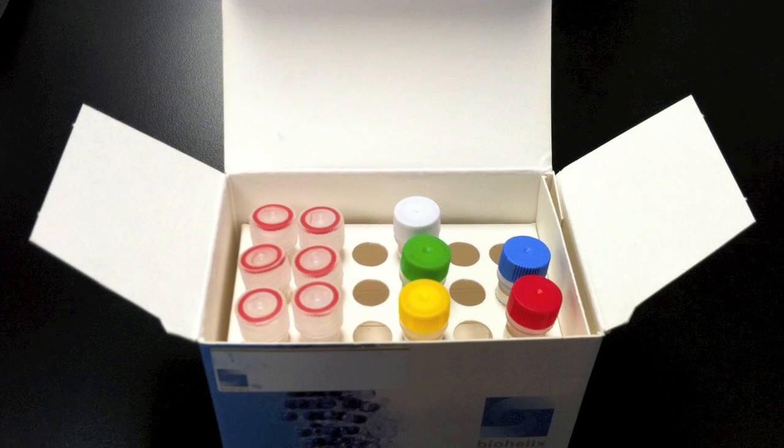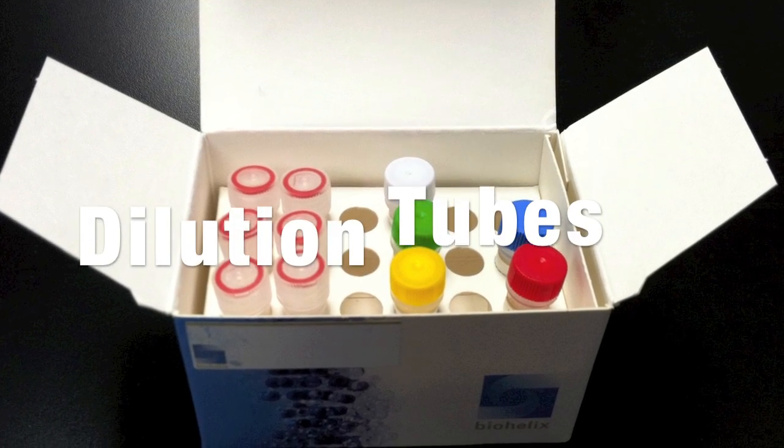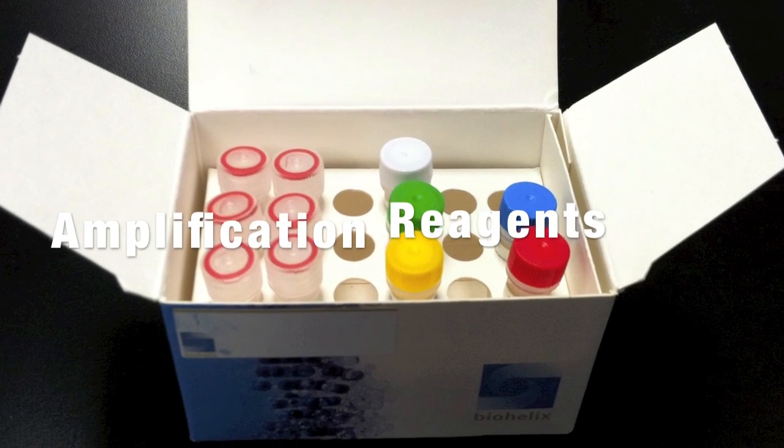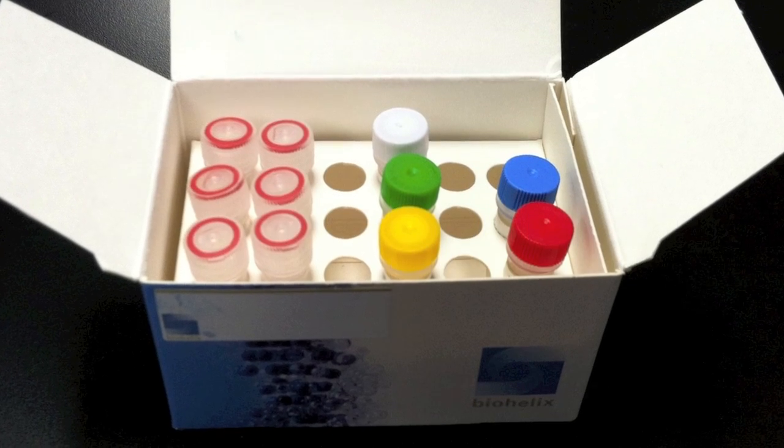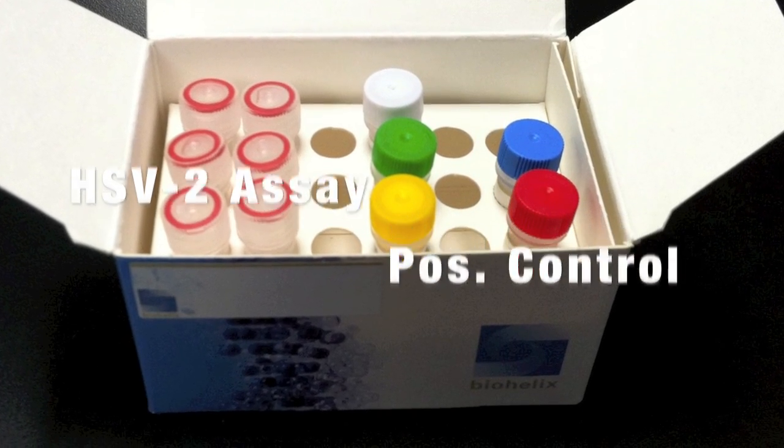In a typical BioHelix ISOAMP HSV assay kit, you will find dilution tubes, amplification reagents, enzyme reagents, HSV-1 assay positive control, HSV-2 assay positive control, and assay negative control.